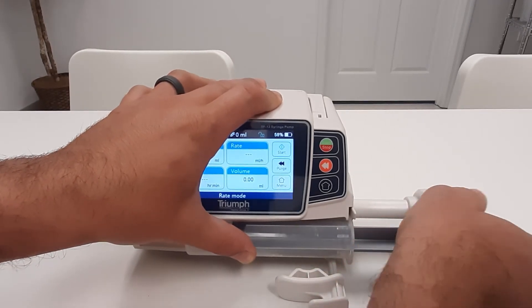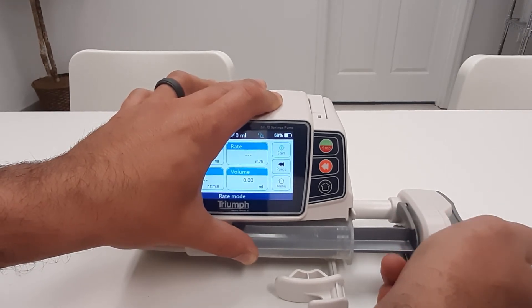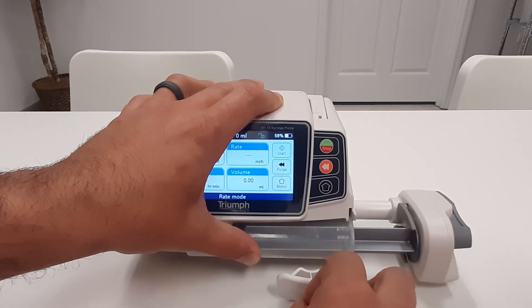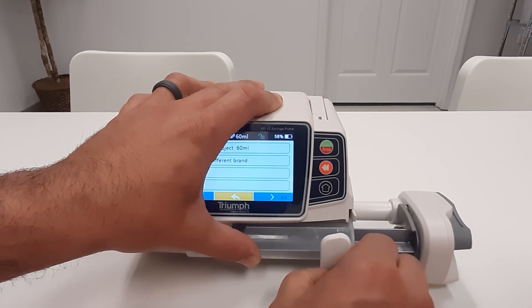Depress the plunger handle and engage the plunger holder on the plunger of the syringe. Then move the barrel clamp back to the vertical position, slowly releasing to secure the barrel.